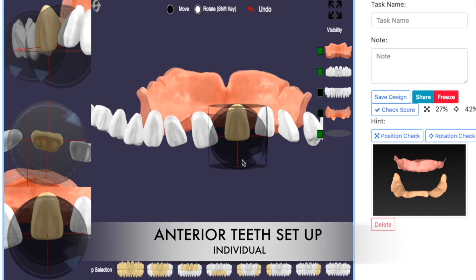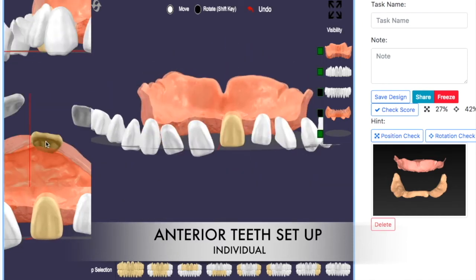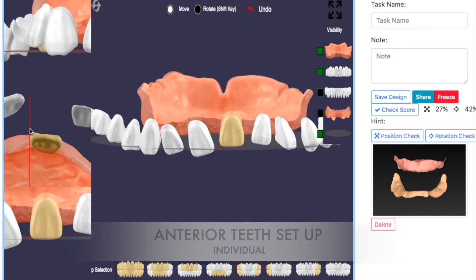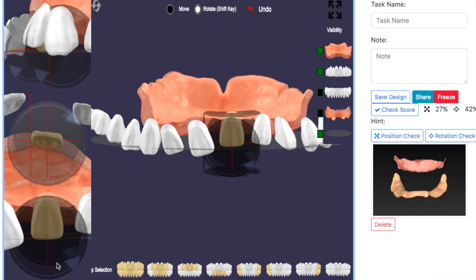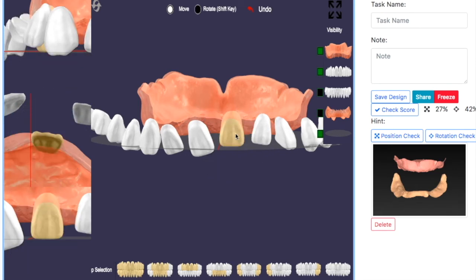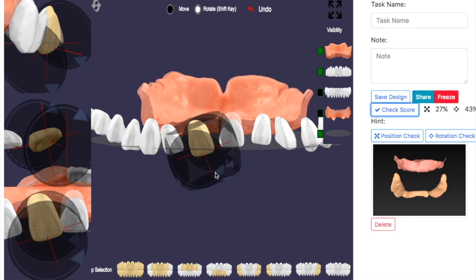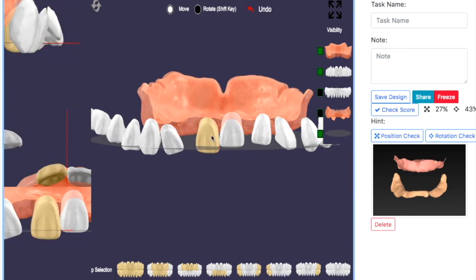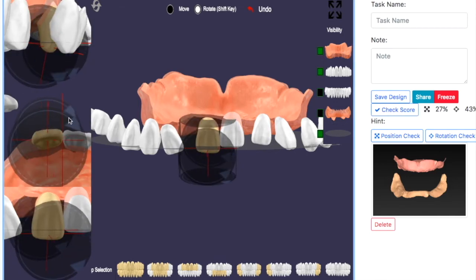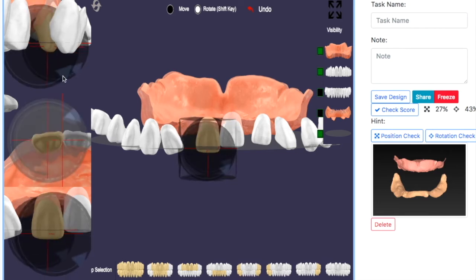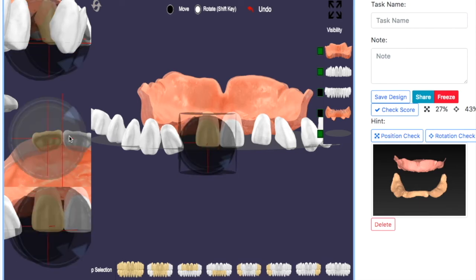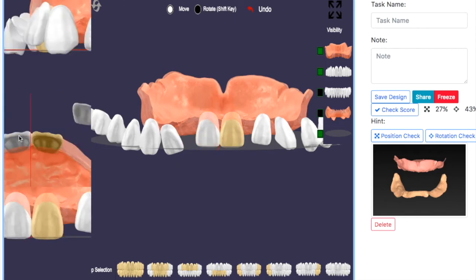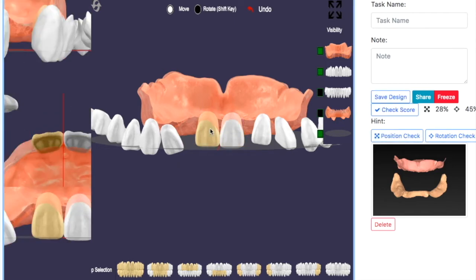Based on what we just learned, we position the central teeth accordingly. Be careful — you need to watch the XYZ location. On the left-hand side of the screen, it will show you the XYZ location, and you could use the cursor in any position, allowing very detailed movement on this particular position.